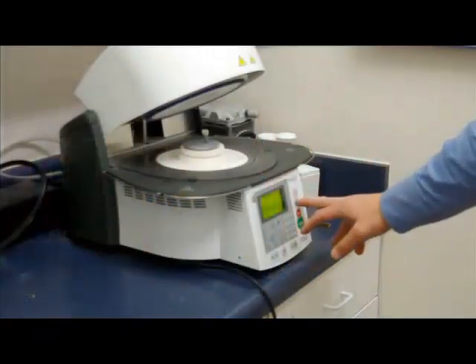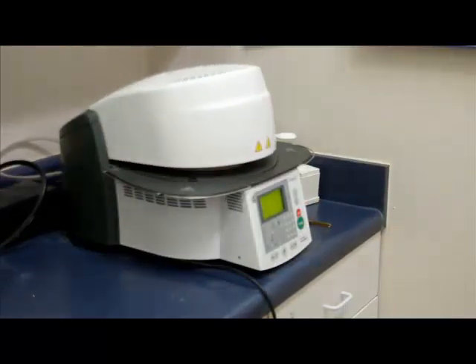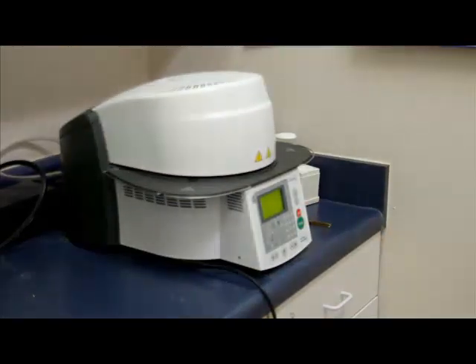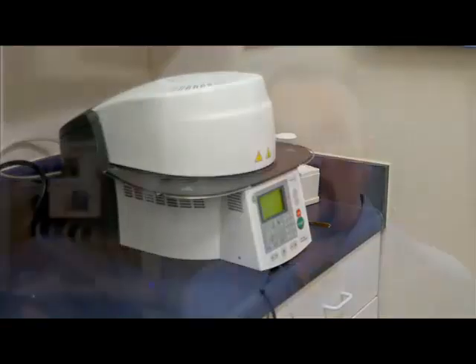Ovens are a critical piece of our equipment. It is absolutely necessary that we have a high quality oven — not just for the quality of the glaze when it's finished, but for the efficiency, the speed, the predictability. You get what you pay for when it comes to an oven.